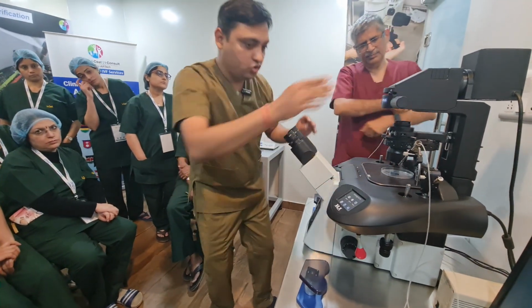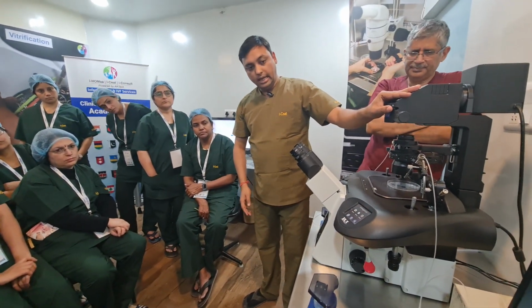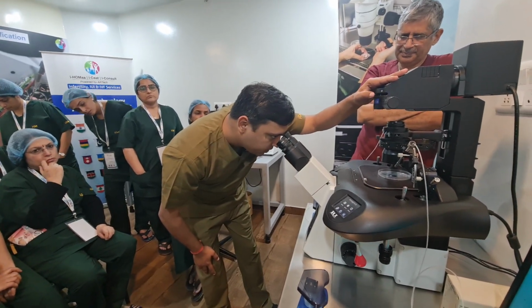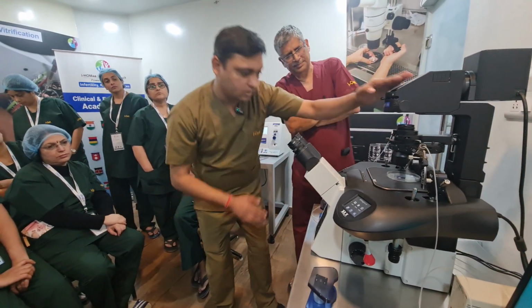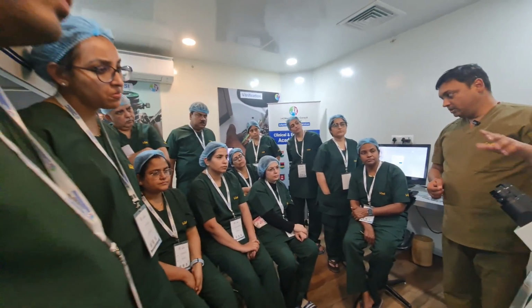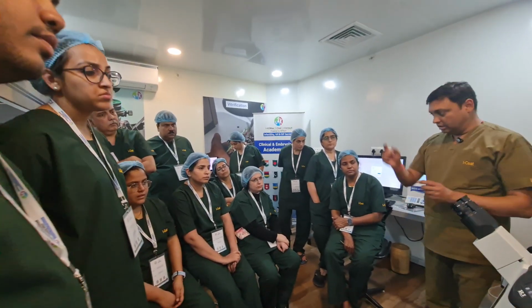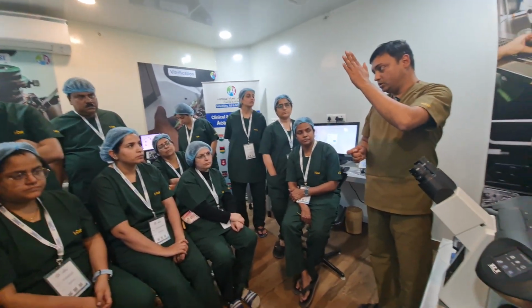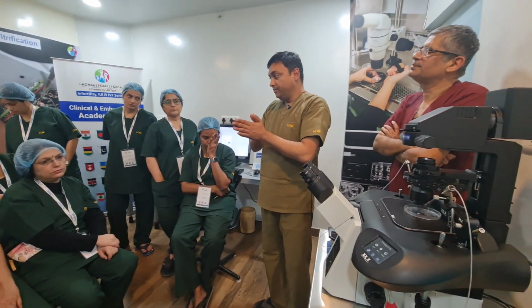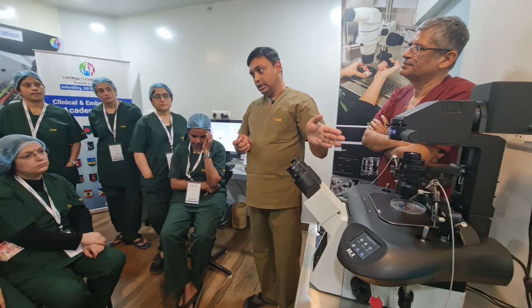It should be one hexagon. It's not clear in that, but inside it is a hexagon, and I will fix the hexagon accordingly so that it covers your entire objective, your entire eyepiece. That's it. So you can see there is simple straight light going to your objective, so your image will be clear. If the light separates into different paths, your image will not be as clear.